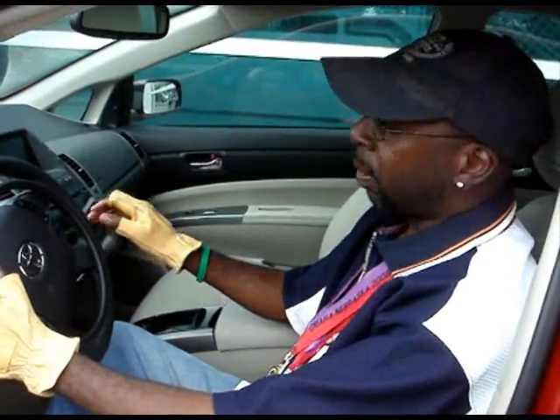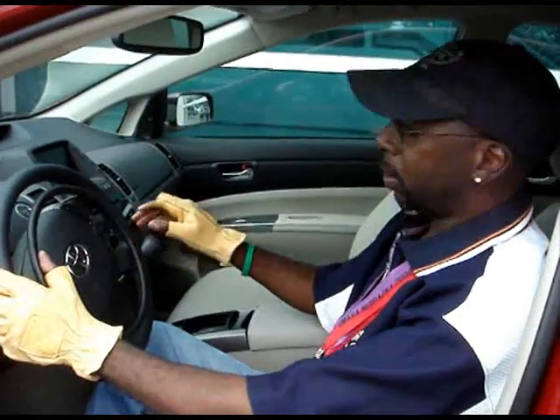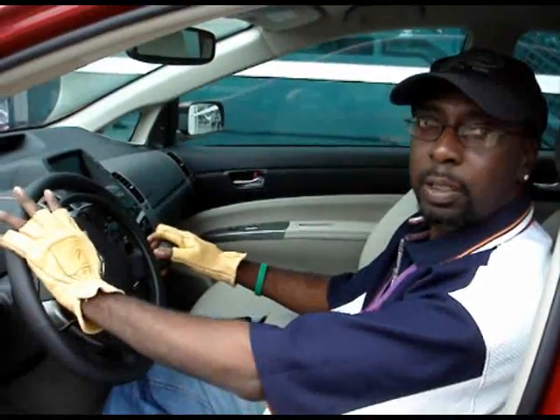Using the regular hand controls for 18 years, but trying the digital ring after one day, I could definitely see this becoming the new way to go. Hands free, both hands on the wheel, one hand on the wheel resting on the armrest, ready to brake, still easily accelerating by depressing the digital ring.